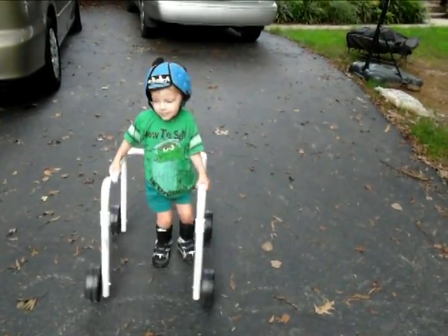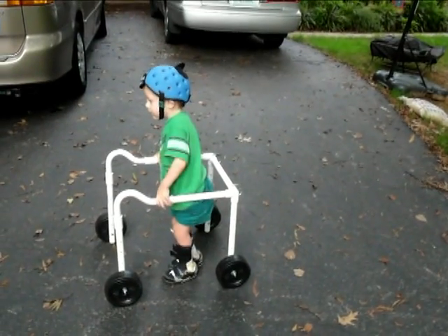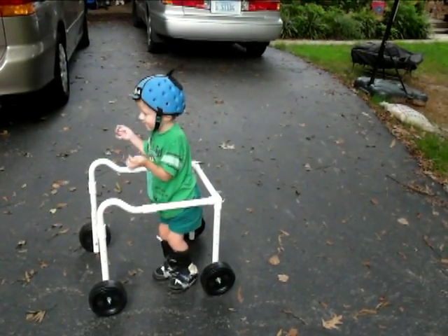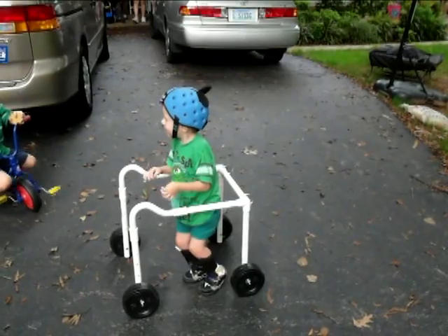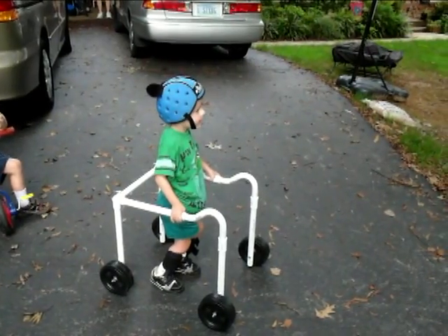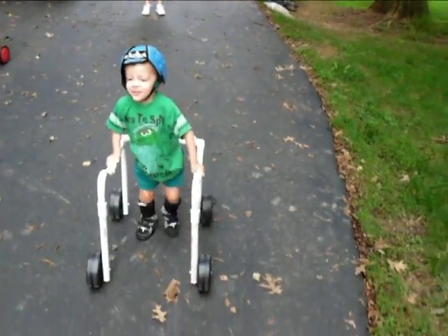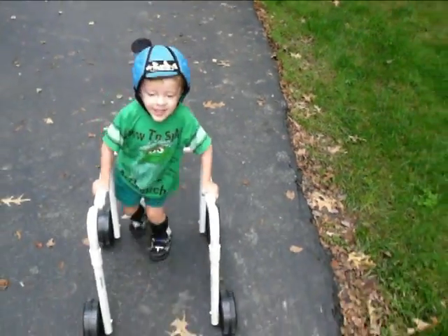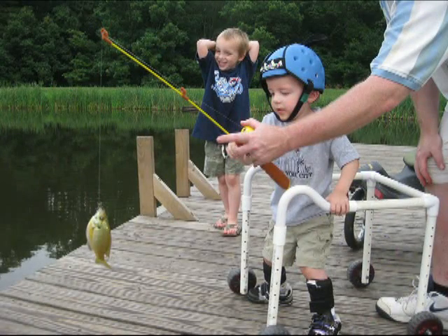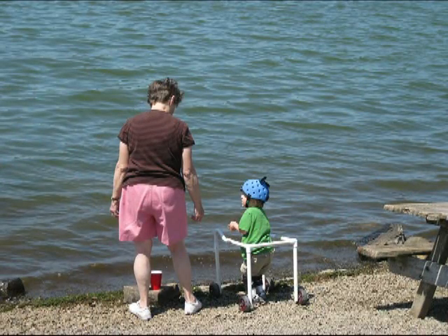You can turn around. Put your left hand in, put your right hand out. John is now using the completed walker. I just don't know how you can do it every morning. Are you going fast, John? Do you ever want to skip a day, hide away, or just stay in bed?